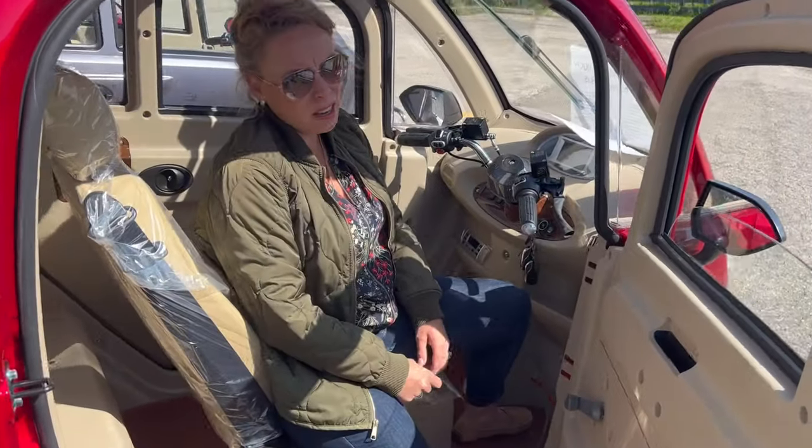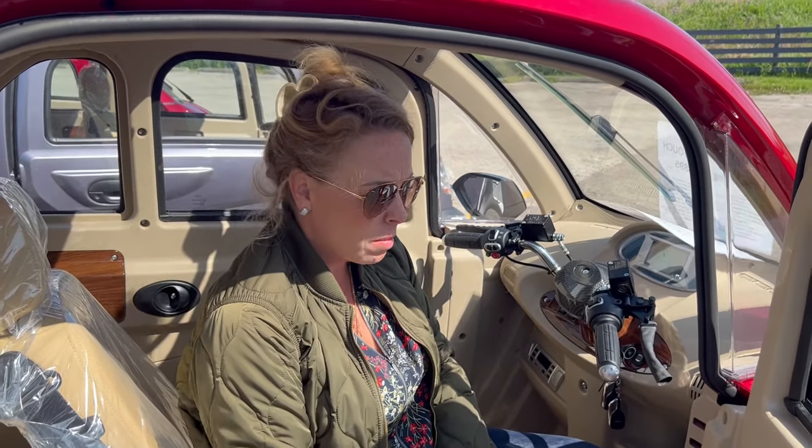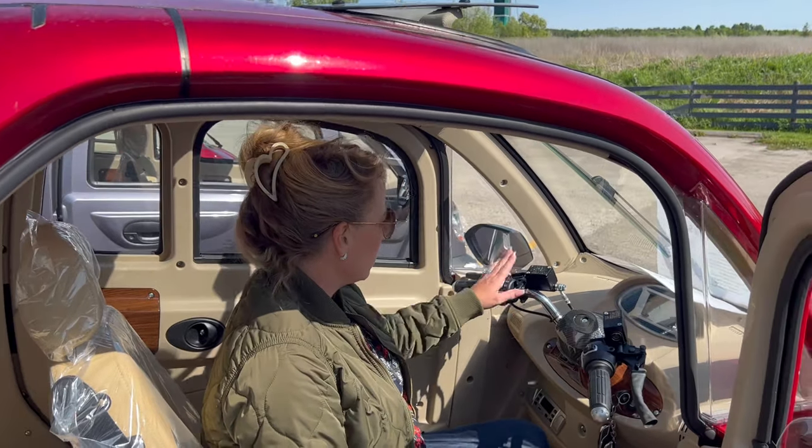There's no HST on these. I know they come with a bit of a price tag — almost $9,000 for the lead acid and almost $11,000 for the lithium. Thanks to me, because I wanted these available in lithium. But there's no HST, and that's a bundle of savings.